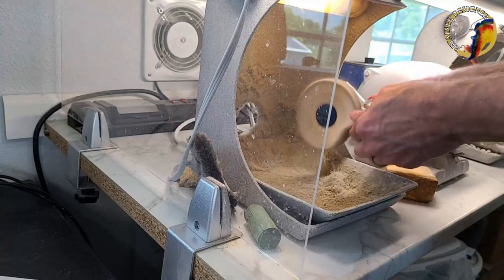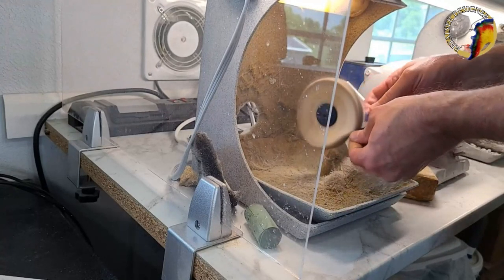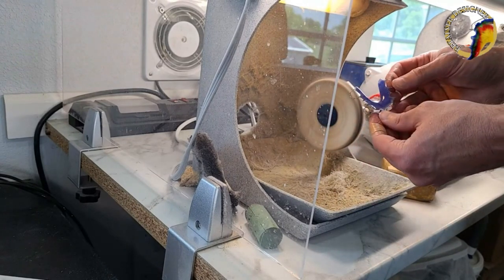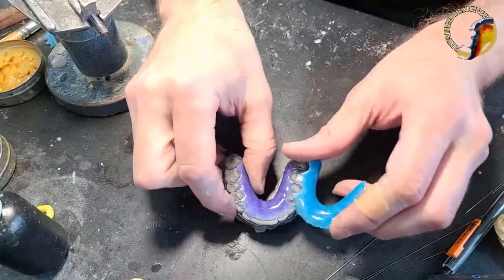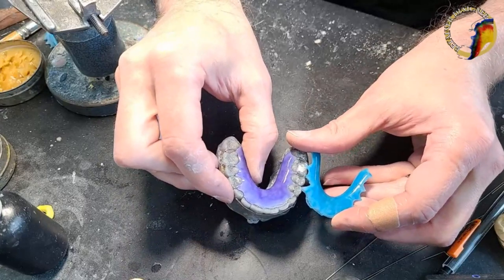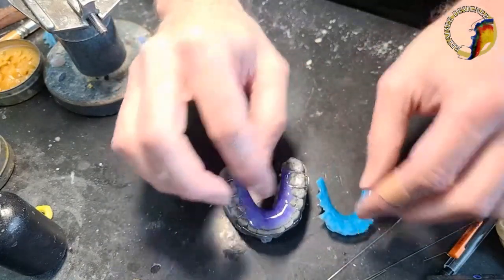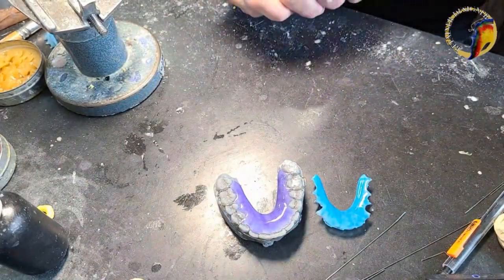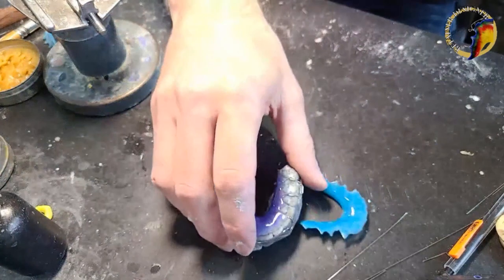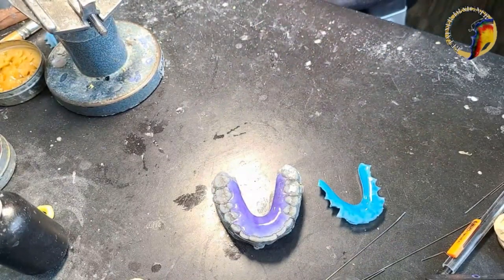A little high shine on the wheel — make this nice and shiny. Okay, so we're done with that one. We have officially gone from luminary blue to blueberry. If I had the right kind of camera I could turn off all the lights and these would both glow, but you can see the difference between luminary blue and luminary blueberry. I think the patient will be extremely happy with that change.